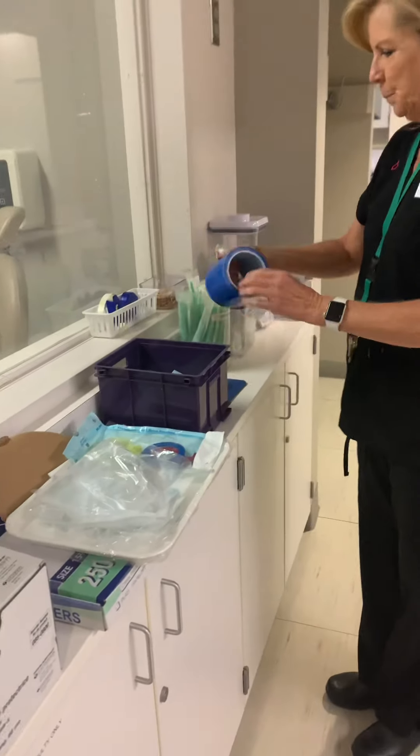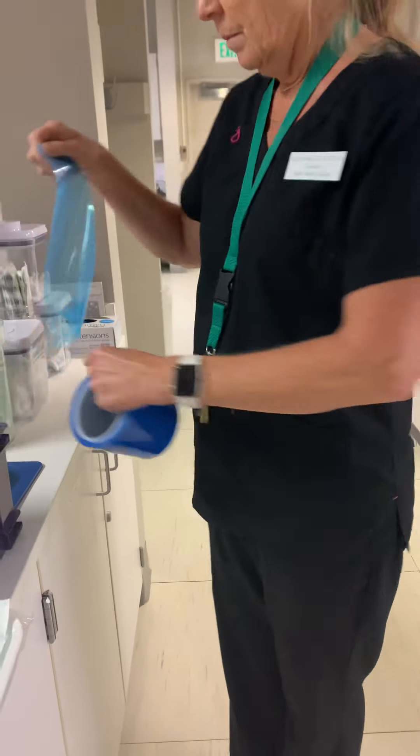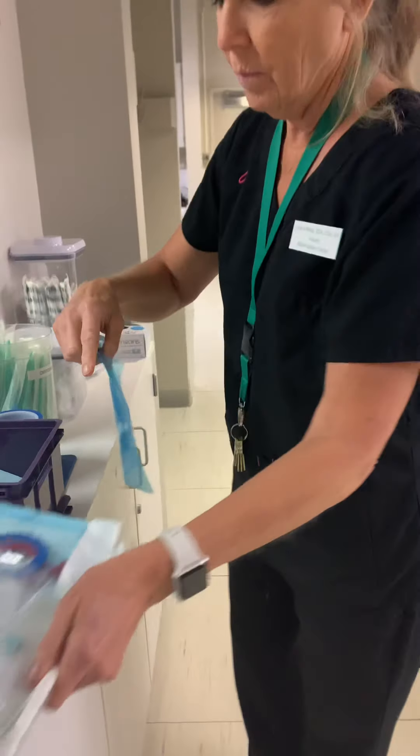So she has all those good things. Now she needs to get two of these coveralls — blue coveralls. She's going to grab two of them and then she's going to proceed to her x-ray room.